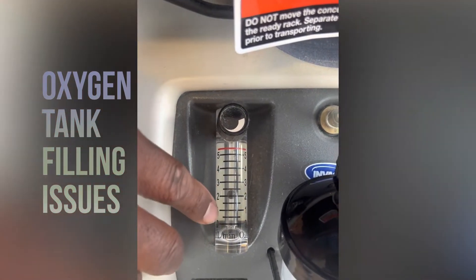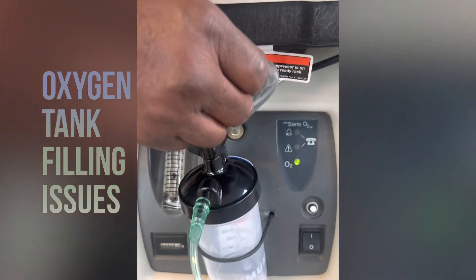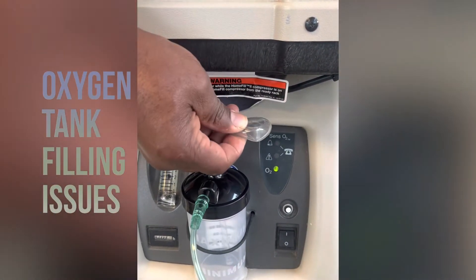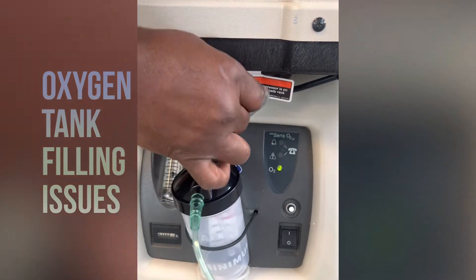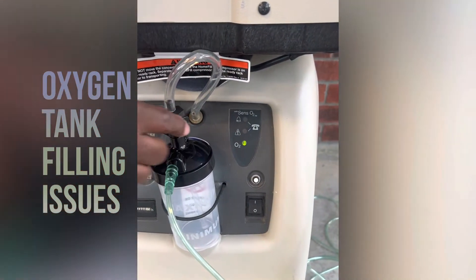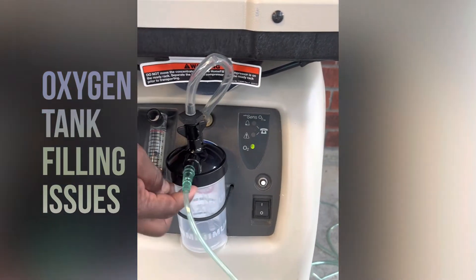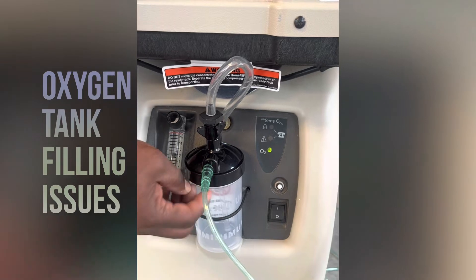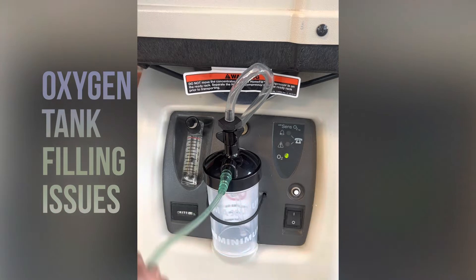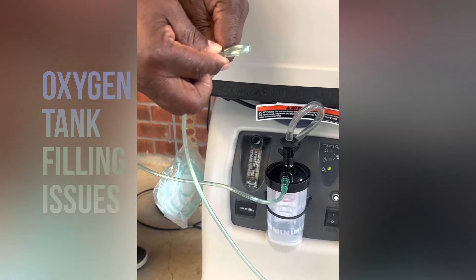The next question: do you have any kinks coming from your bottle and your concentrator? If there's a kink, take it out and make sure that everything is tight on your bottle — all connections have to be tight and secure. The bottle top has to be tight and not cross-threaded on top of the bottle. Take your hose and follow it along — just make sure you don't have any kinks in your hose.